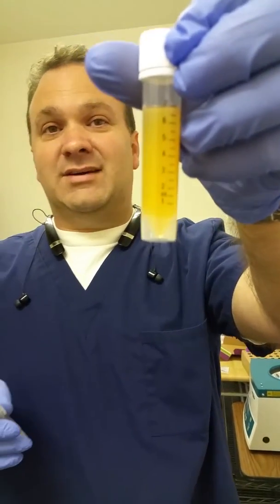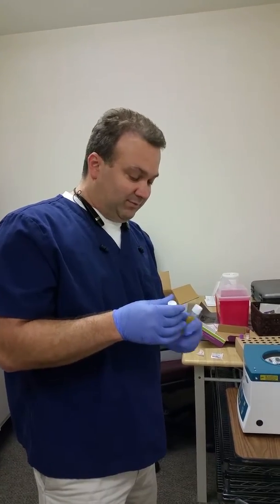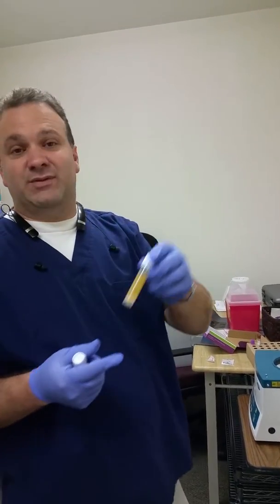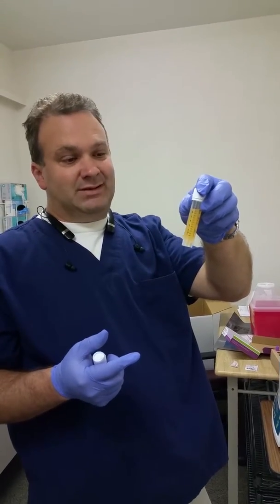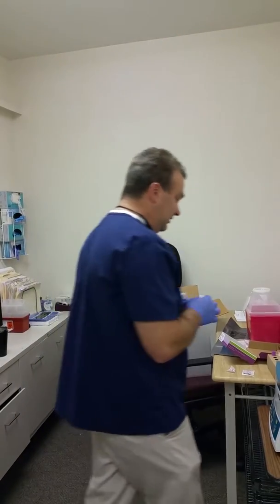In this case, you can tell that it's pretty darn cloudy. That means a high lipid count, and sometimes tests can't be run if they're high in lipids. There are certain tests that can't be run. We run lipid tests just to make sure beforehand. But this one's pretty lipemic — this one shows that the blood's not the greatest. They need to eat a little bit better.